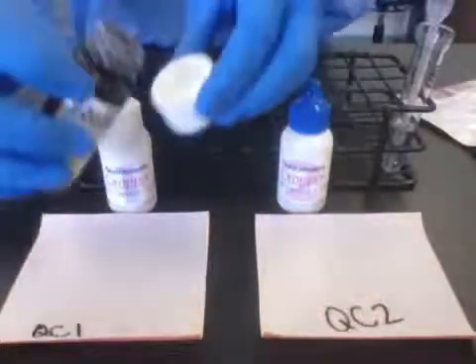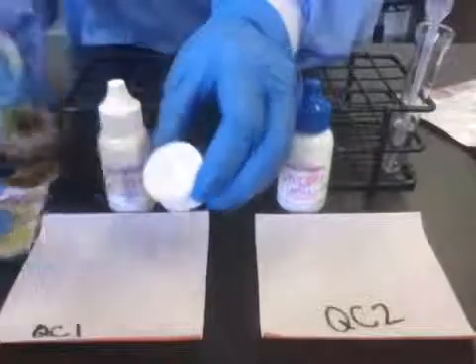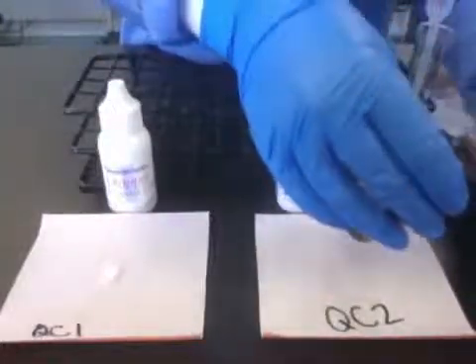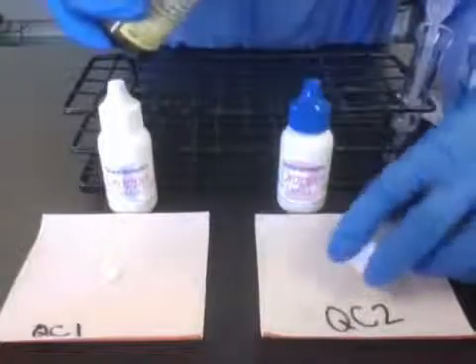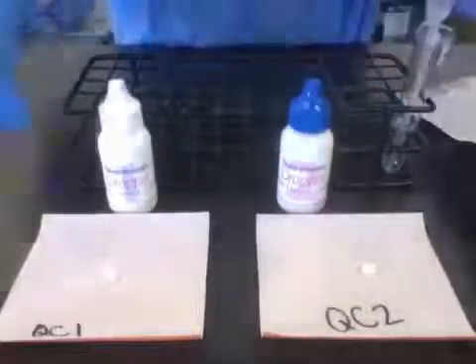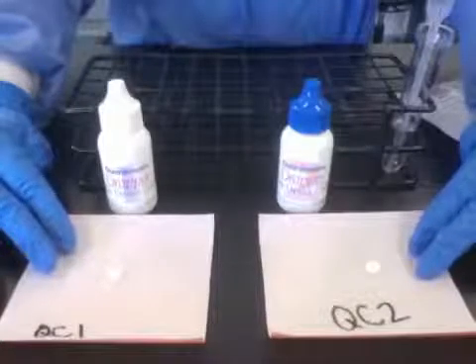Then I'm going to dispense one tablet into the lid and put the tablet onto the paper towel or white absorbent wipe. Sometimes it can be a little tricky getting just one tablet. Do not touch the tablets with your gloves or hands, and always be sure you are doing this test on a surface such as these.